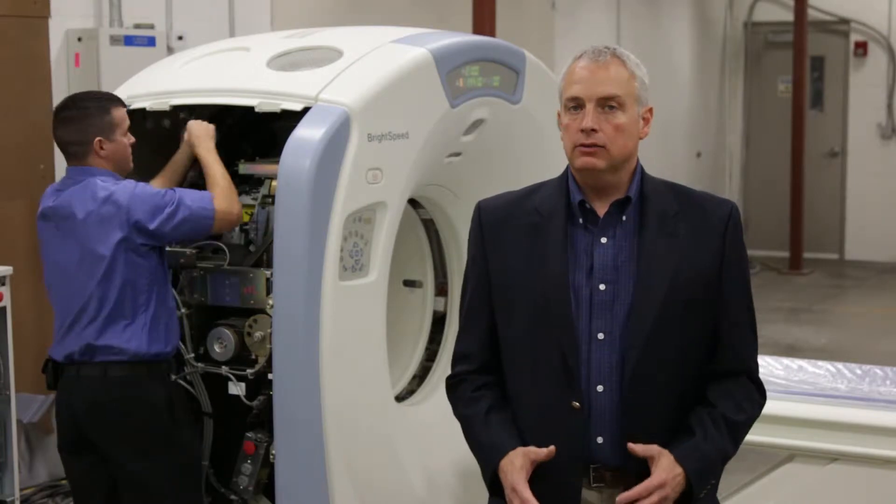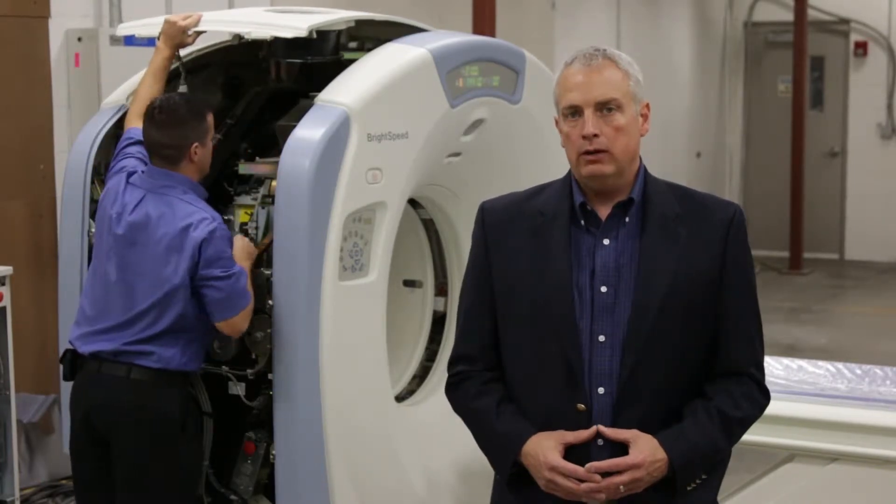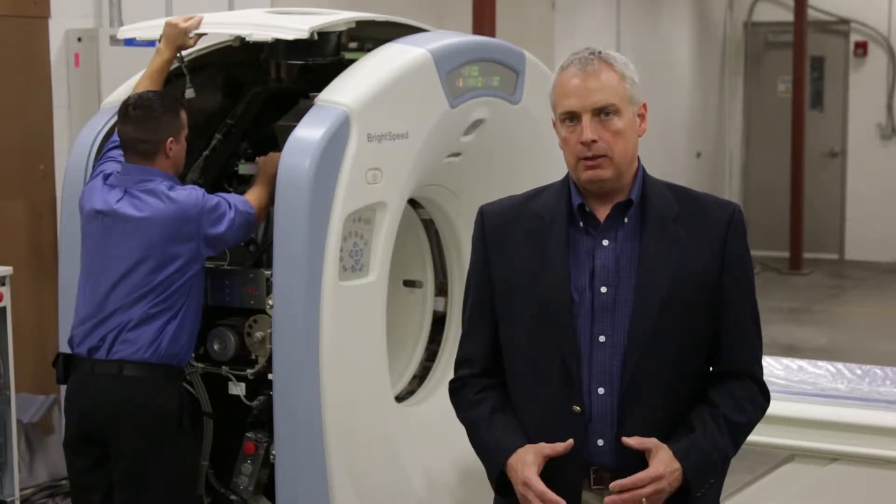We plan, install, refurbish, train, and troubleshoot when and where you need us most, quickly and economically.